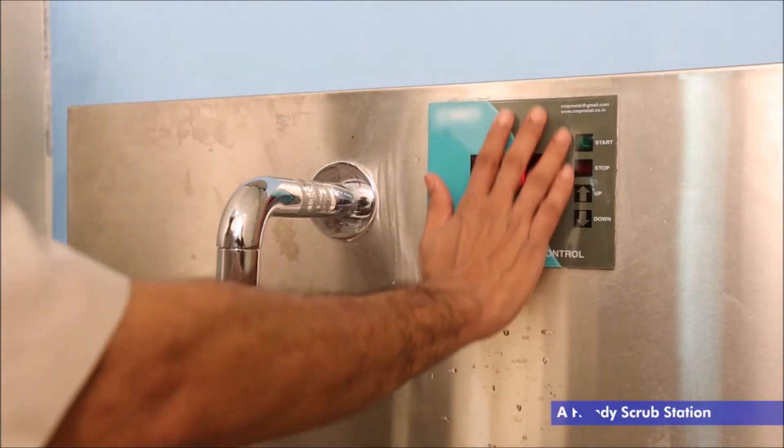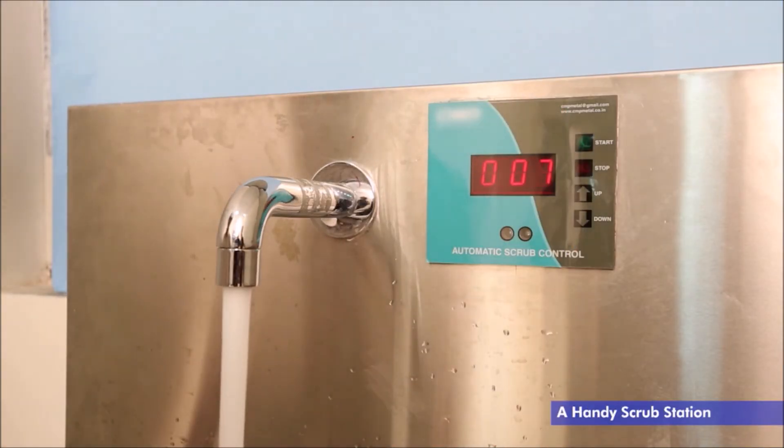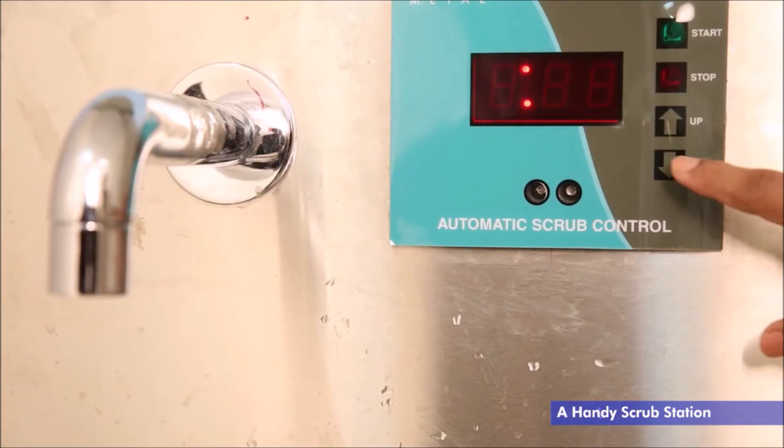A handy scrub station for hand wash, equipped with motion sensors. You can adjust the timer as per your requirements.